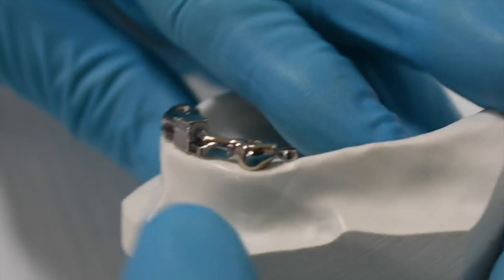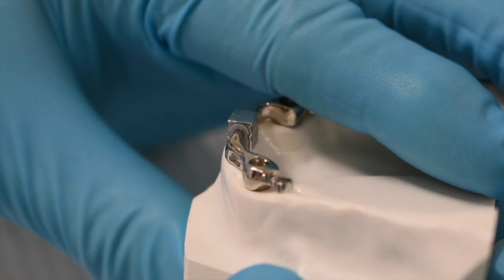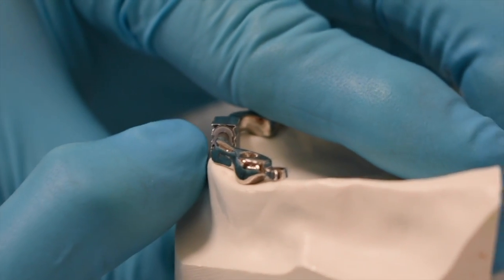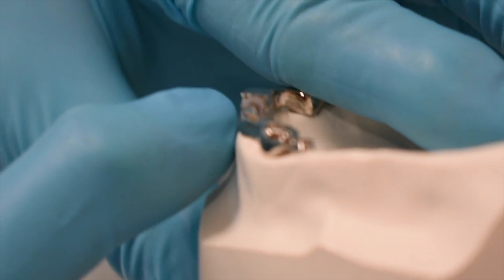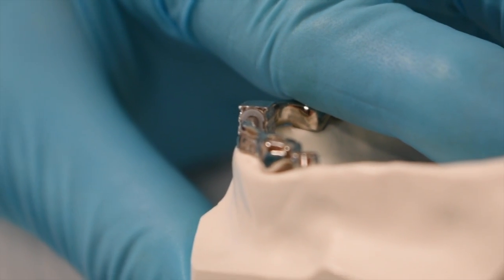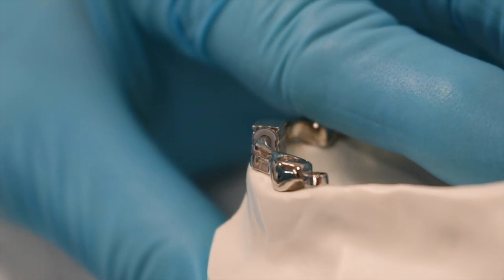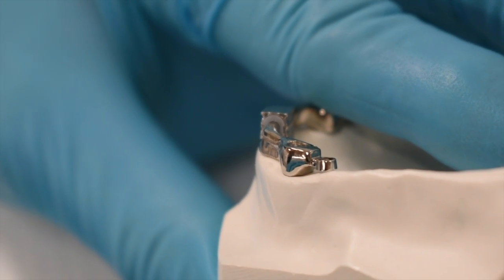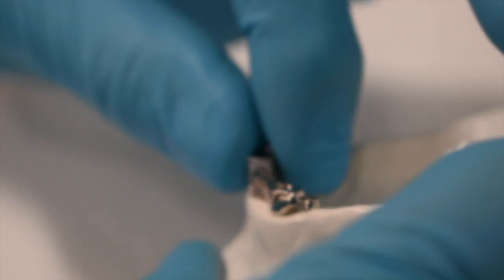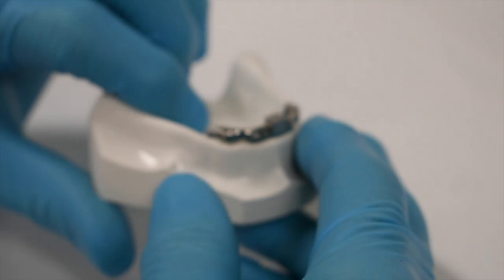You can see there's the open end, and you can see that before, I had this part on the metal underneath the plastic part. It was a groove in the plastic rider. So if it's really difficult for you to put it on, then back off and line it up. Just wiggle this housing a little bit until it slides on with relative ease.